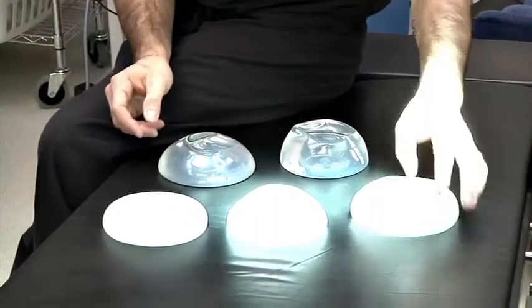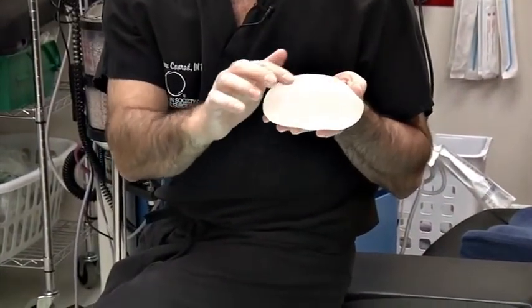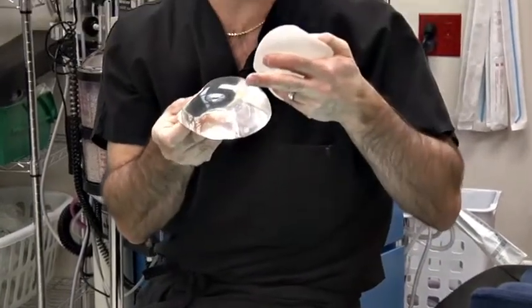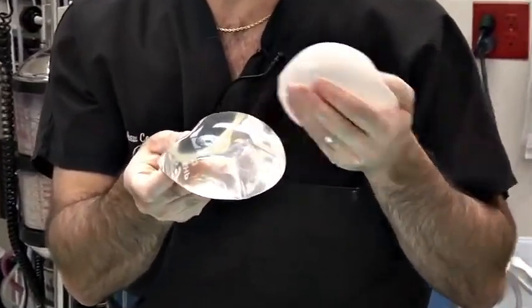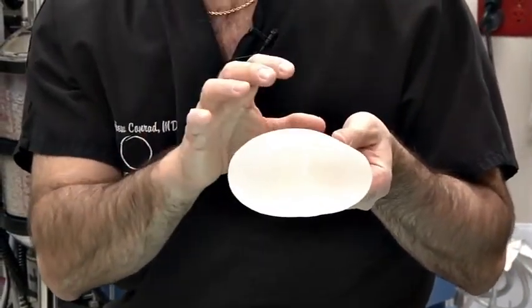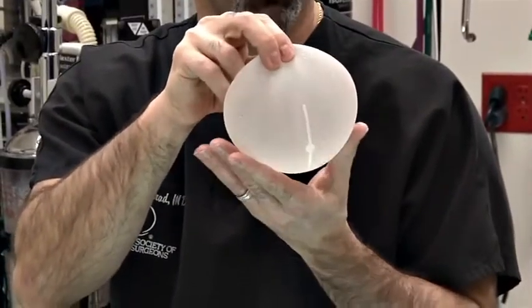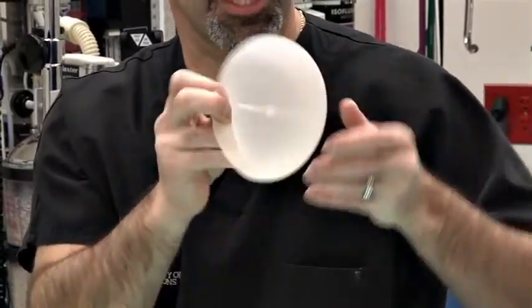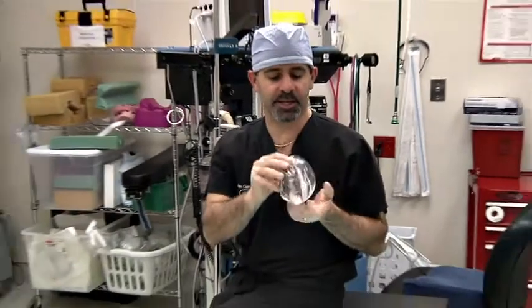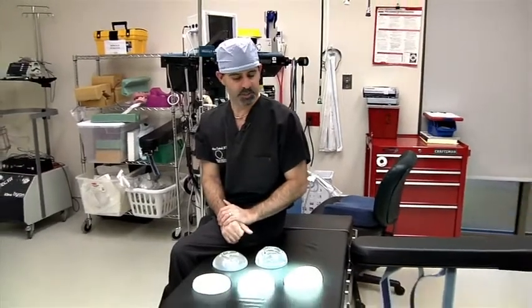Interestingly, these shaped implants have a different surface texturing to them, and if you touch it, it's kind of rough, in contrast to these smooth implants, which are typically the round implants. And this texturing or this roughness allows the implant to be held in place by the soft tissue that surrounds it, because you would not want this implant to spin or turn upside down, whereas with a round implant, it's inconsequential. If it moves, it's not a big deal at all. In fact, we kind of want it to spin. So there's a little bit of differences between the shaped and the round implants just demonstrated there.